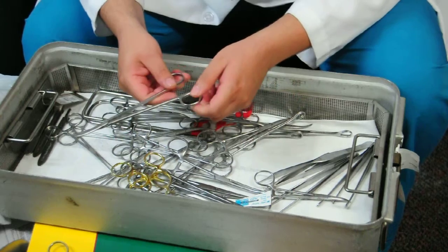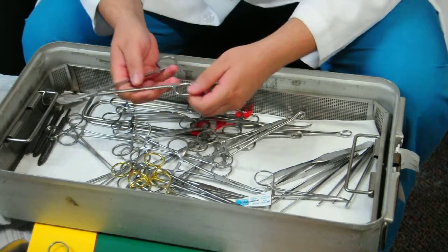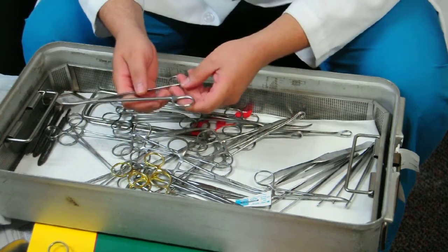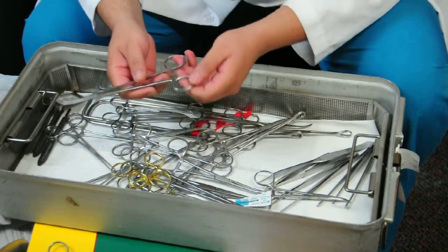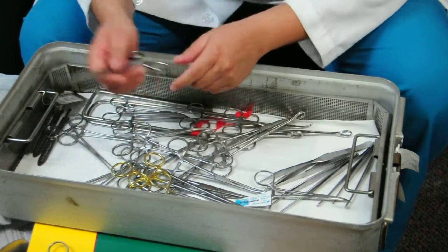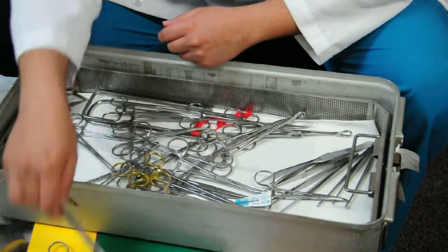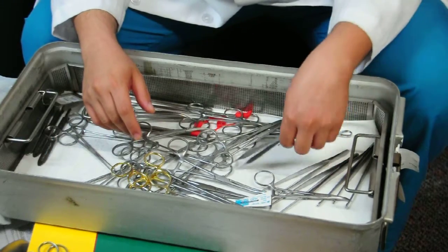These are Metzenbaum scissors, which are much lighter than mayo scissors. They're used to cut filmy adhesions and things like the bladder flap and avascular spaces.